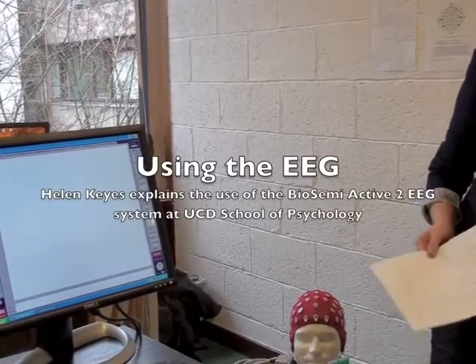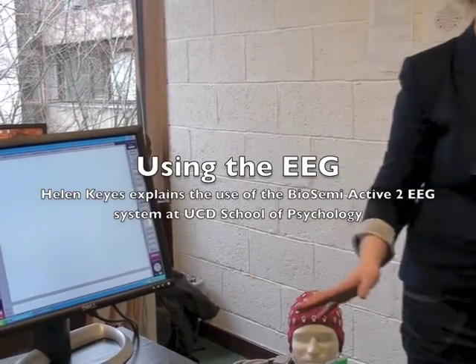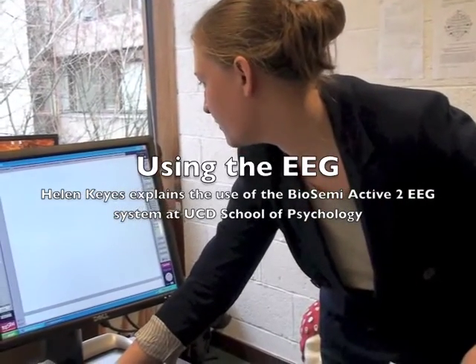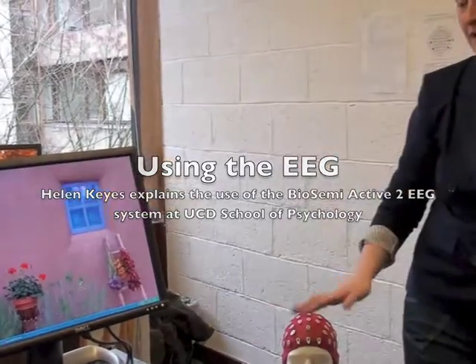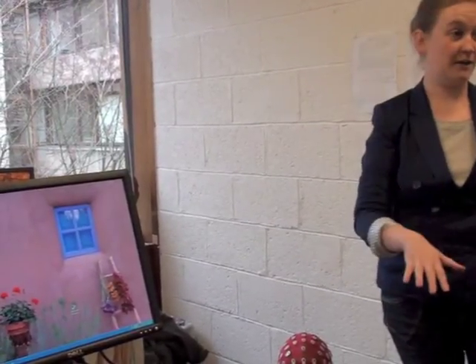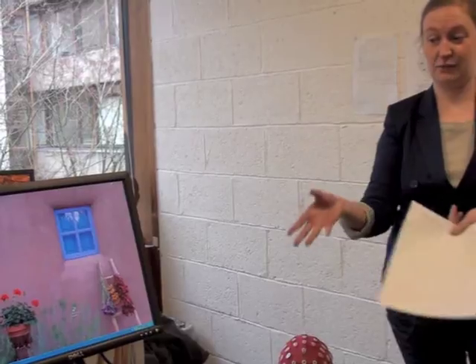Okay, so I want to run through exactly what you do if everything was turned off. I'm even going to close down this program, and you just come in. The important thing to know with EEG is that it's all about time. It measures everything in milliseconds, and that's why it's useful.